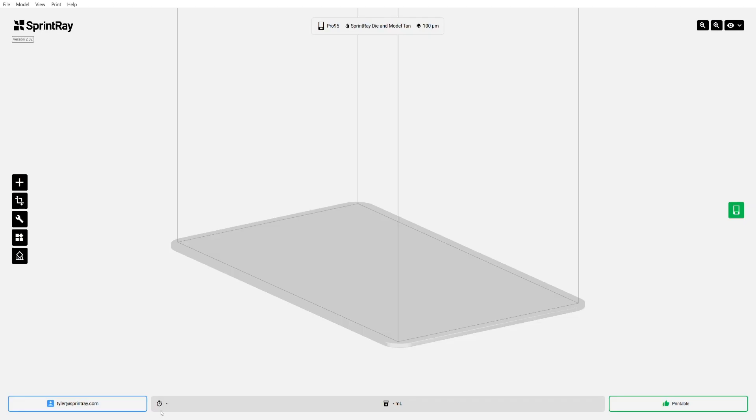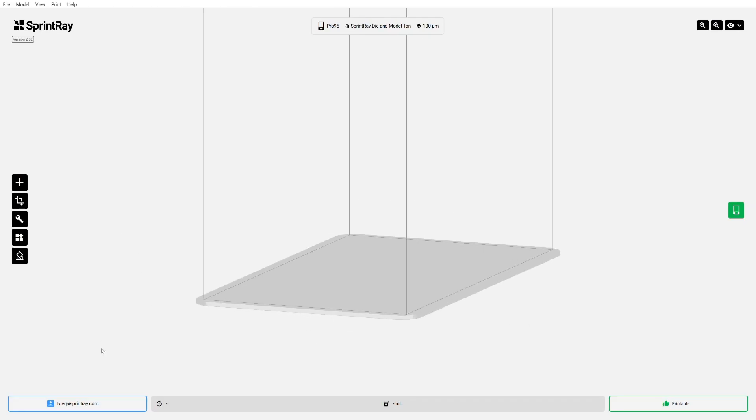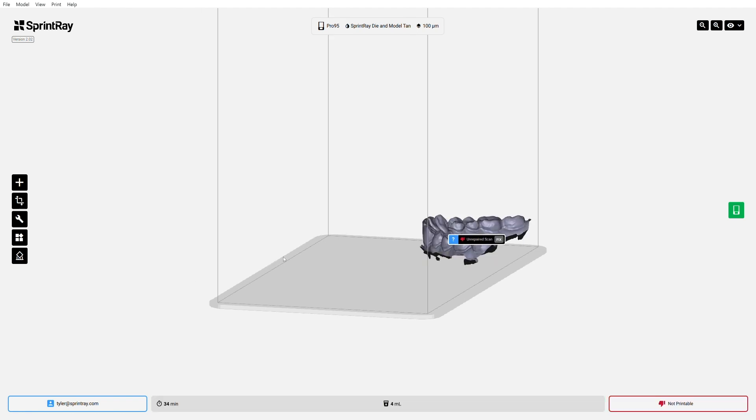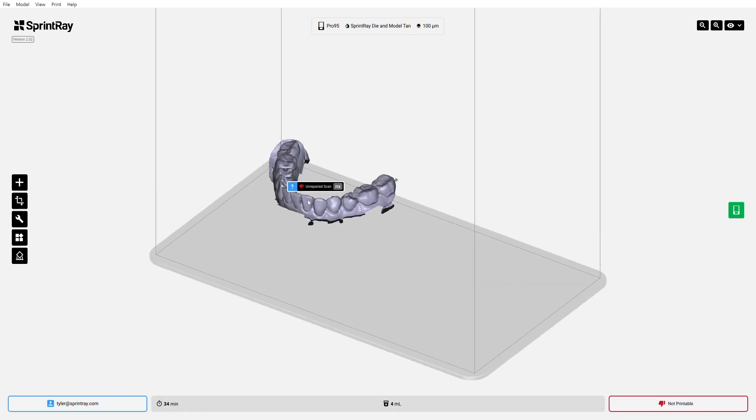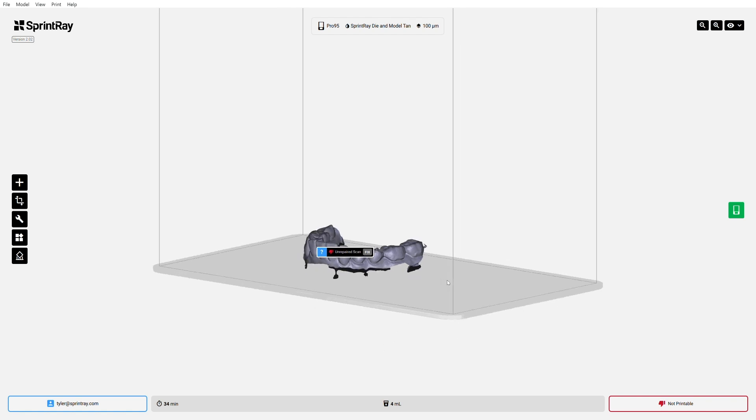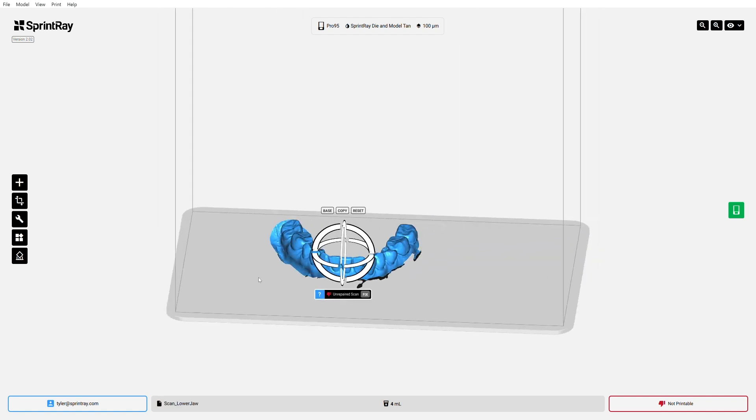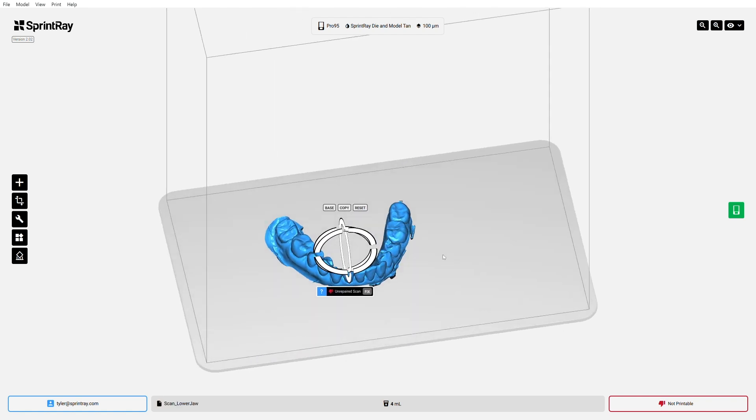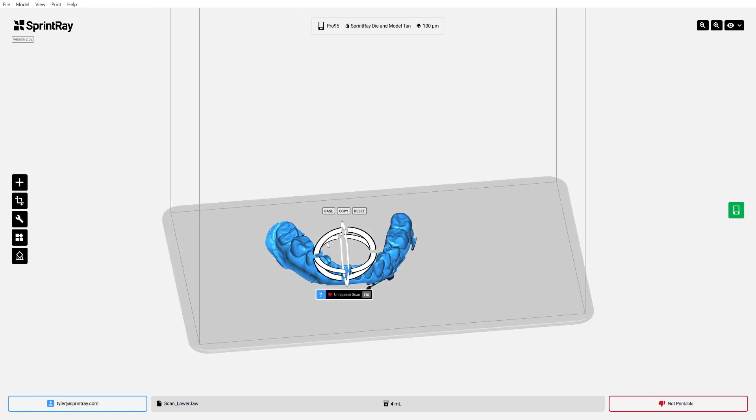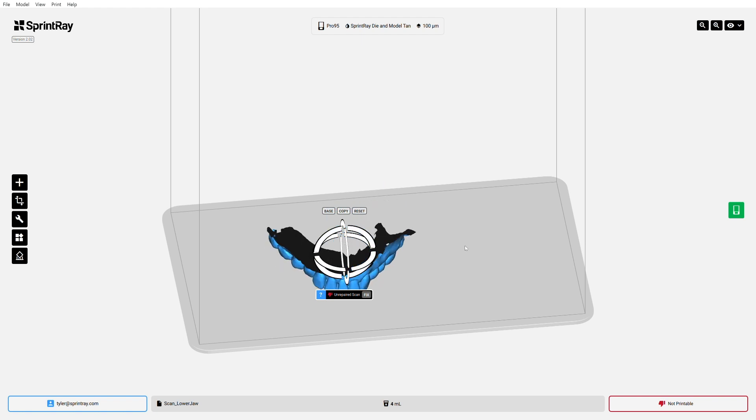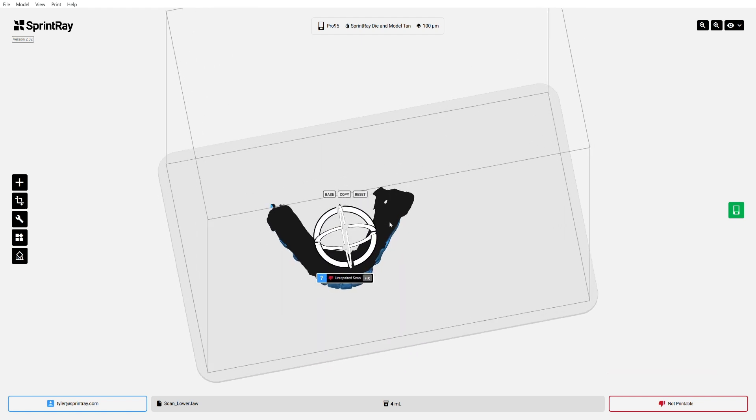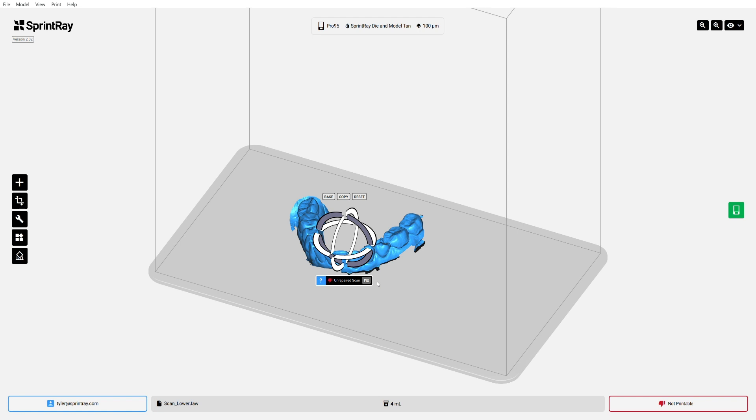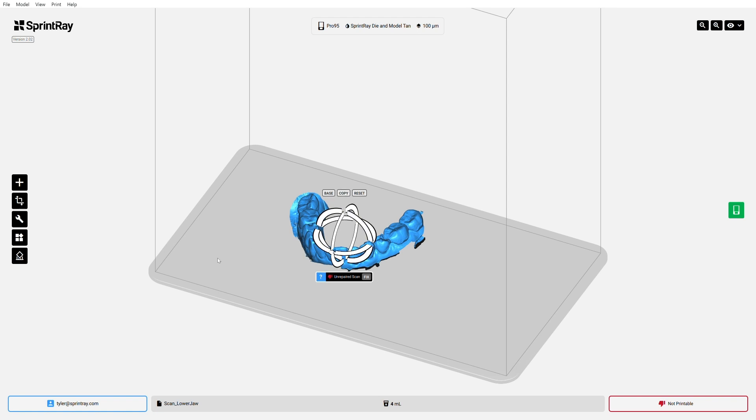We're going to be faced, as usual, with the Sprint Ray Pro build platform. So I'm going to go ahead and pull my model in here. This is a lower jaw raw STL scan. It is not going to be closed, and you're going to see right away Rayware is going to pick up on that. It's going to say that's not cool, that is not going to print. That's an unrepaired scan that you brought in. And we can verify that ourselves. Just flip it upside down. All this black area basically means that this scan is not closed. It is not watertight. This thing is not going to print. It's going to be a failure if we try to push it through right now.